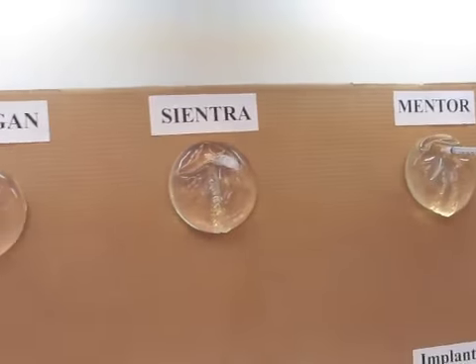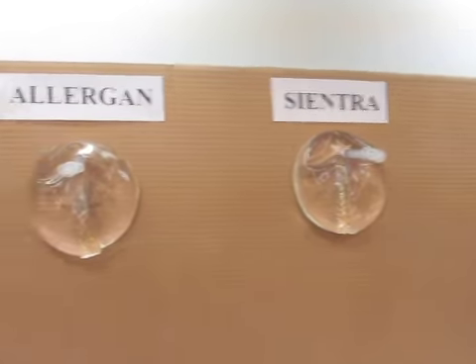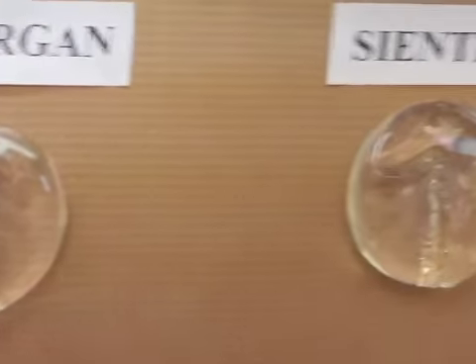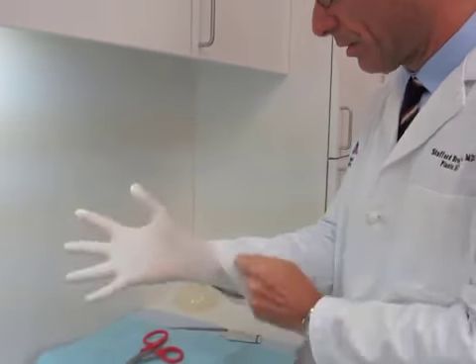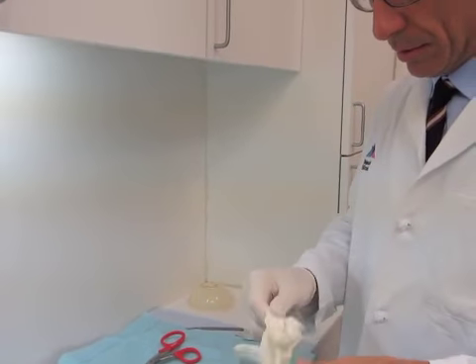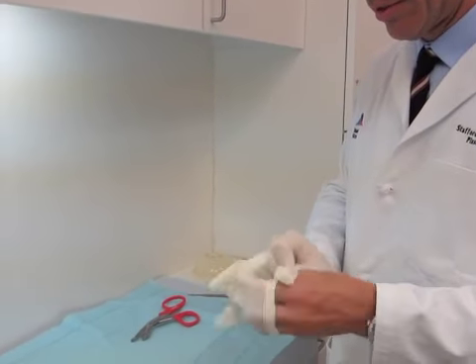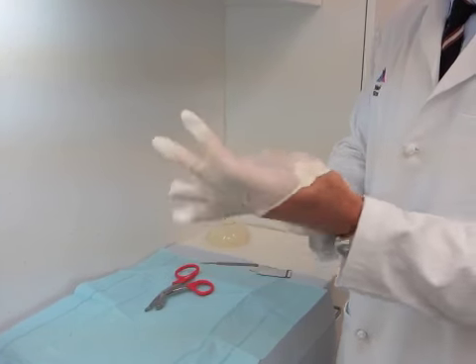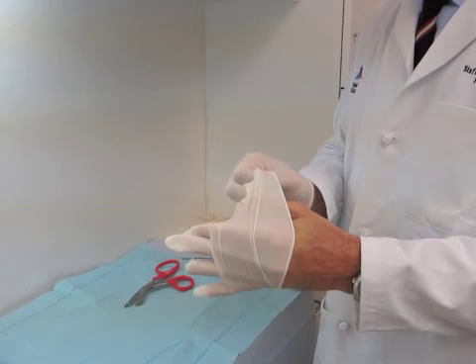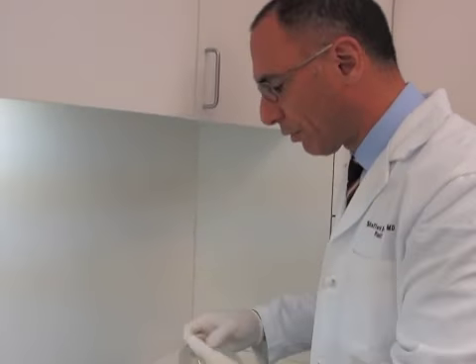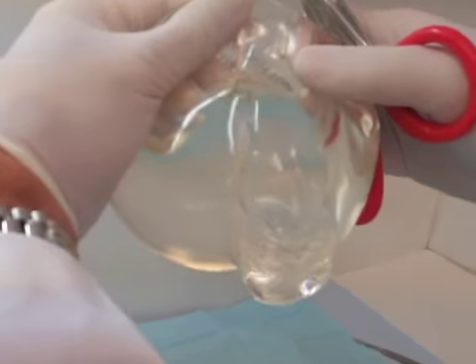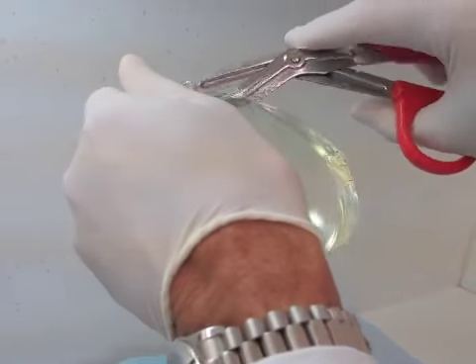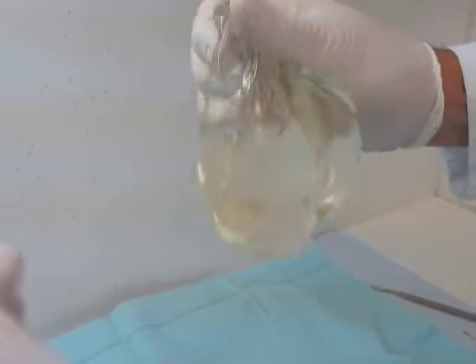What I'd like to do, just to show you the consistency of these gels, is I'm going to put on some gloves. And we are going to try to put on these gloves, and we're going to cut through another one. This is an Allergan Implant, which we have a spare. And you can see, not as cohesive because it tends to bulge out. But I'm going to open it and you'll see what it does.